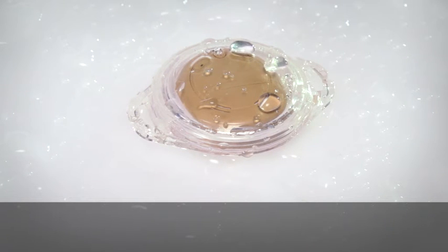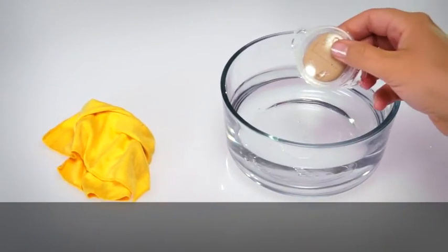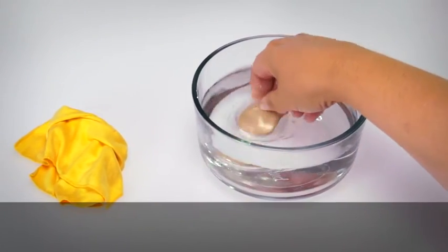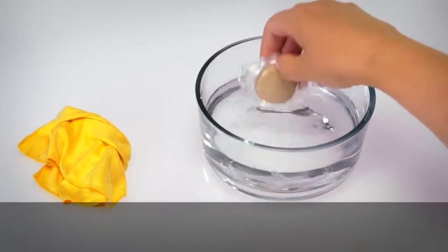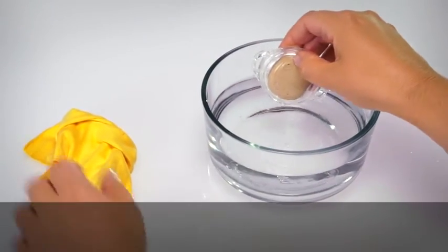After you get wet, rinse your AquaPlus with clean water and dry with a soft cloth.